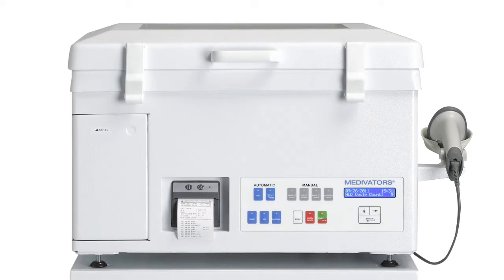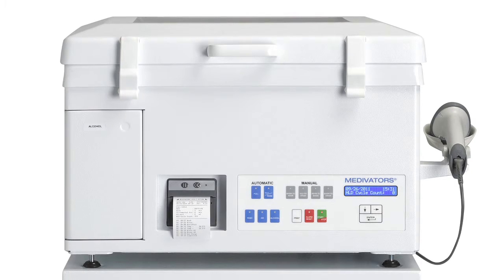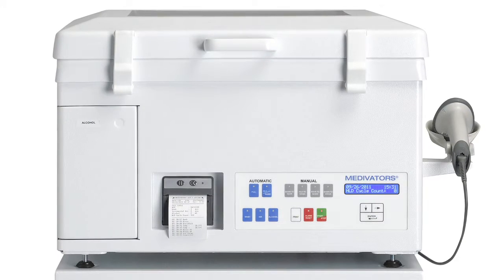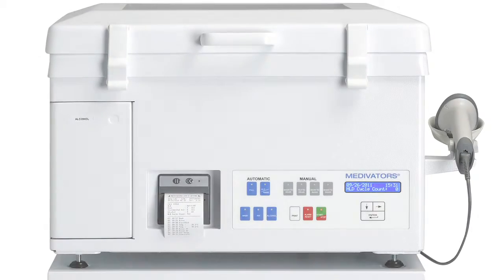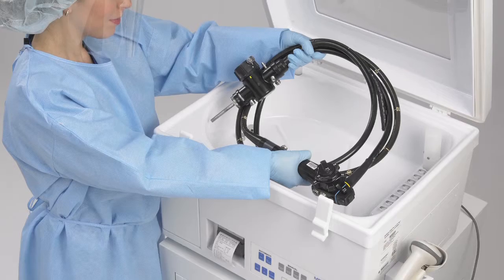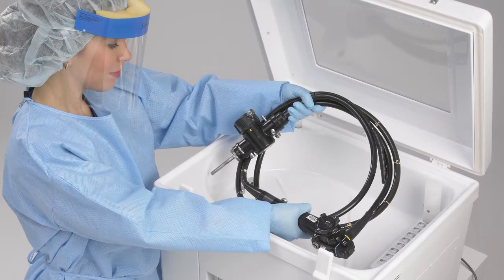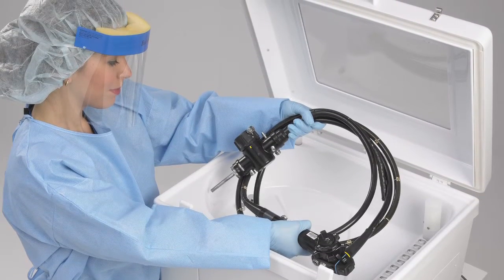The CER-1 and CER-2 Optima automated endoscope disinfectors are semi-portable systems. This design allows for easy installation and movement, or for permanent placement. The disinfector's portability enhances system serviceability in the unlikely event of a service requirement. A loaner can be put in place while your unit is factory repaired.